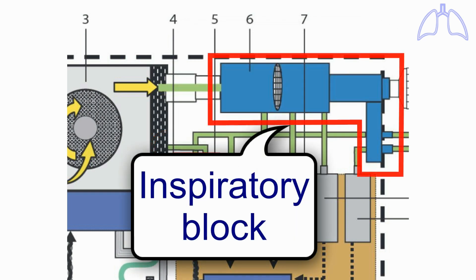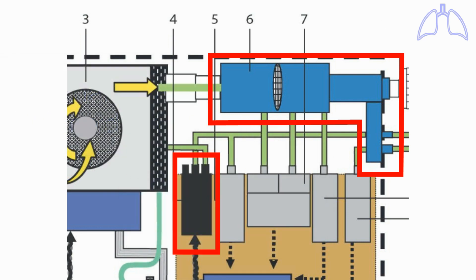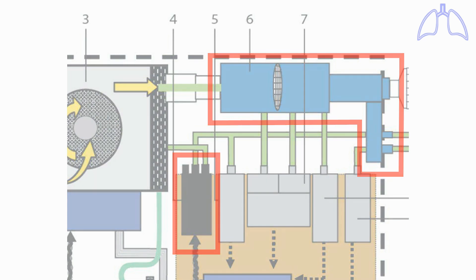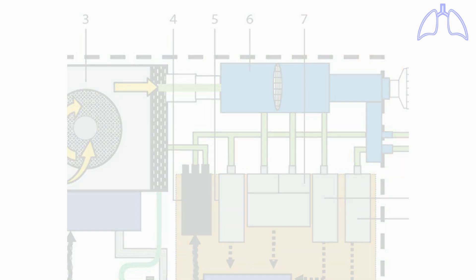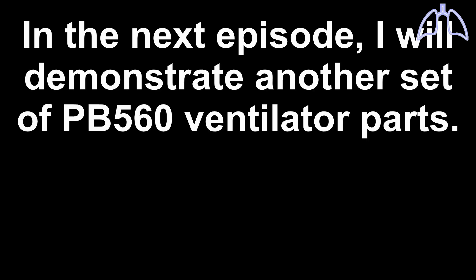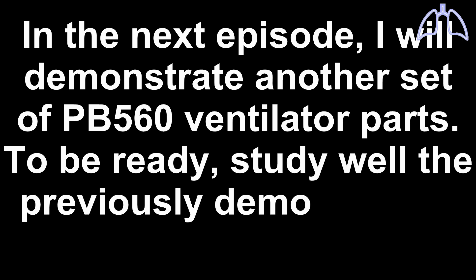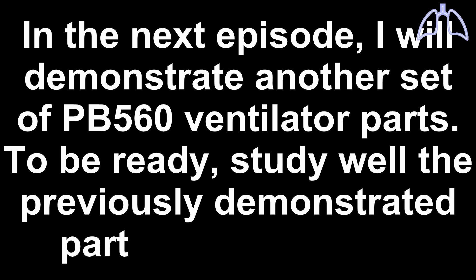To understand how the inspiratory block and the exhalation solenoid valve work, we need to demonstrate another set of internal ventilator parts. In the next episode, I will demonstrate another set of PB560 ventilator parts. To be ready, study well the previously demonstrated parts in this episode.